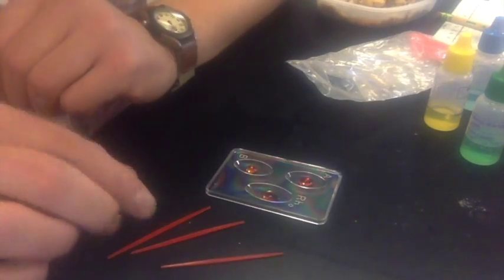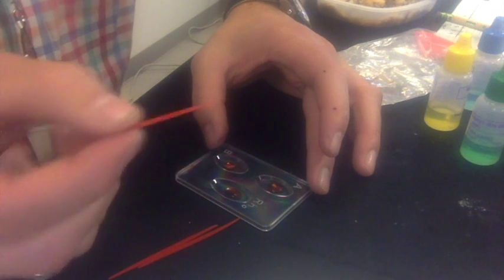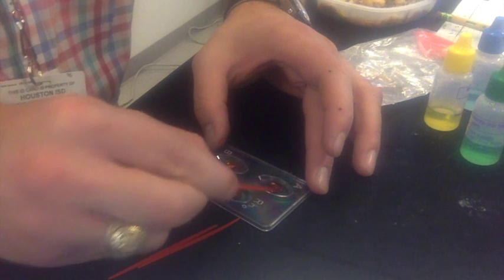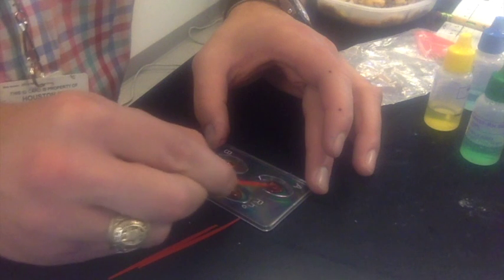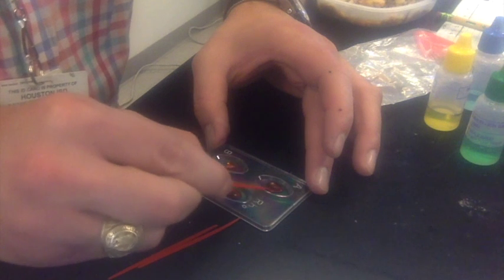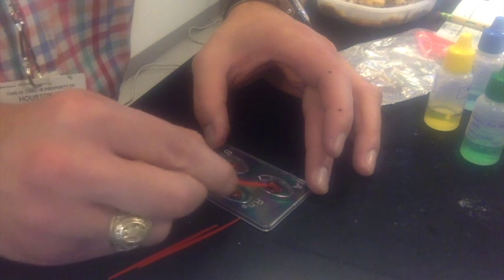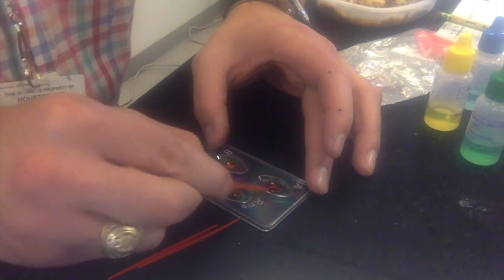Make sure that you use a different toothpick to mix each one, otherwise you'll contaminate the blood and it will be a false positive. So I'll take my first portion, the A portion, grab my toothpick, kind of tilt it sideways, and mix. Now what you'll start to see, if it is a positive test, is that the sample of blood will be cloudy. Because if blood detects a foreign substance, it will start to do something called agglutination, where it will start to clump up and stop whatever is trying to come into the blood that shouldn't be there.